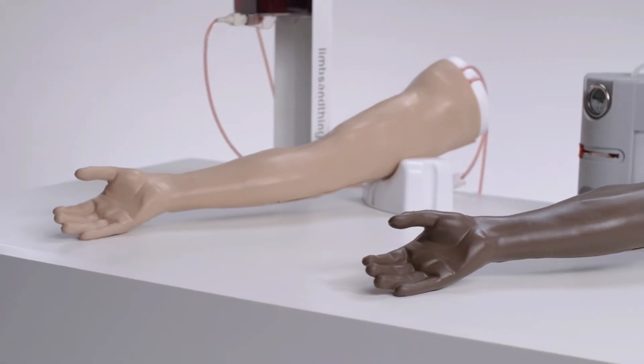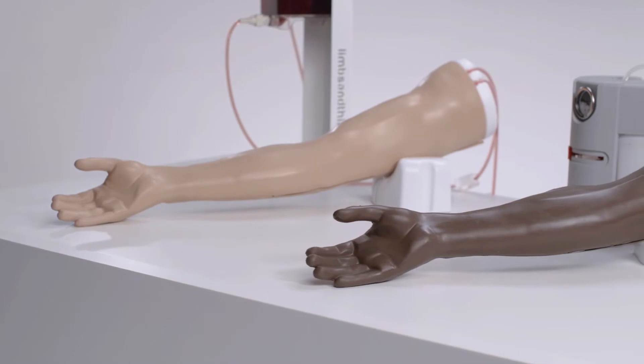Realism, durability and simplicity of setup are key features within this range.